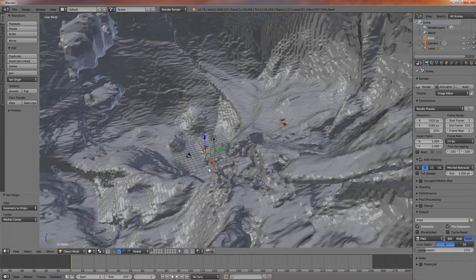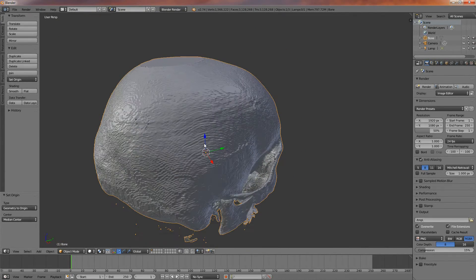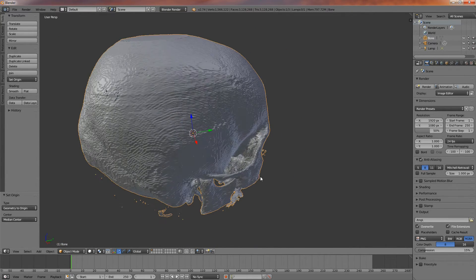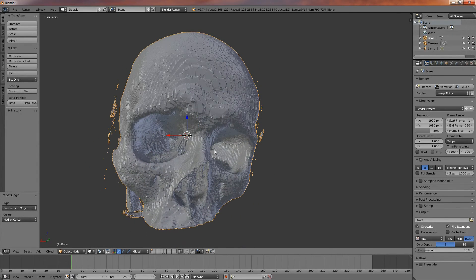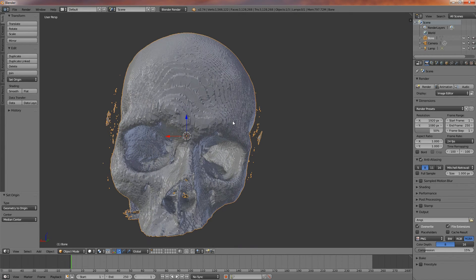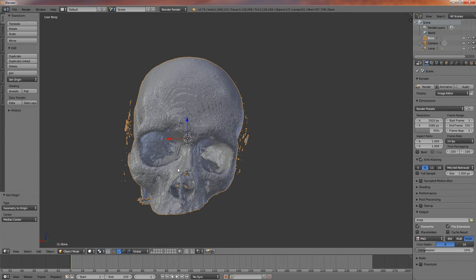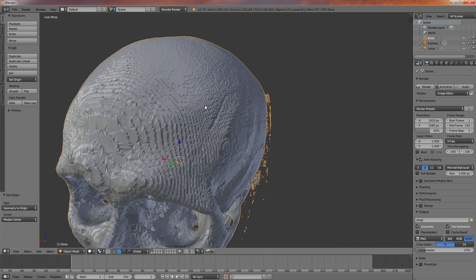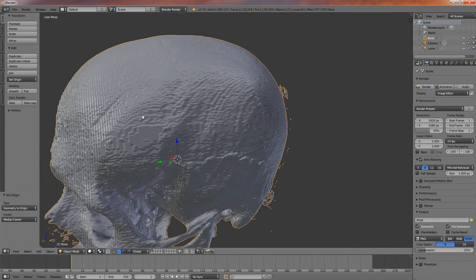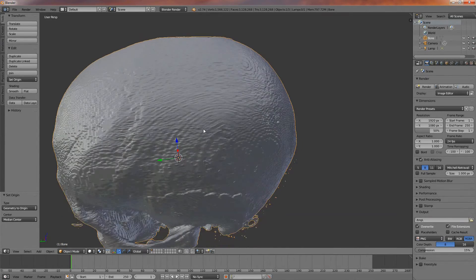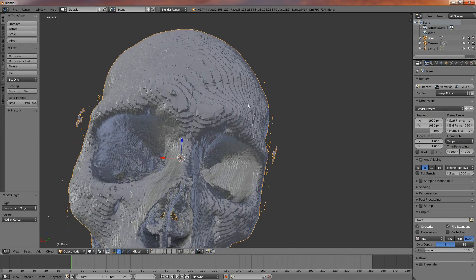You'll notice we're really zoomed in. This is because Blender converts every millimeter of the file into a Blender unit, which is the internal unit of distance. Because the skull is many many millimeters in size, it looks quite big. Zoom out using the scroll wheel and now we can see our skull. There are some problems with it — see all these little islands of mesh or bone on the side? These were captured when we used the Hounsfield attenuation in the CT scan to select the surface model. Also, you can see the scan lines — it's very ridged with a stair-step artifact that we want to get rid of.